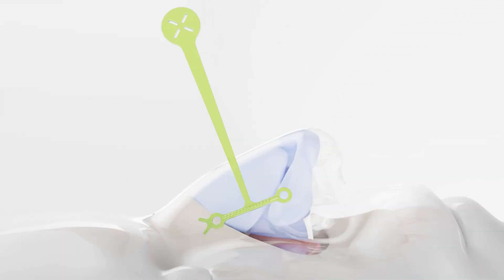When planning, the implant should cross the upper and lower lateral cartilage. The atraumatic tip should be in the area of collapse and the forks rest on the maxilla. Line the planning tool to be parallel with the dorsum. This will help locate the pivot point, which should fall in the area of collapse.